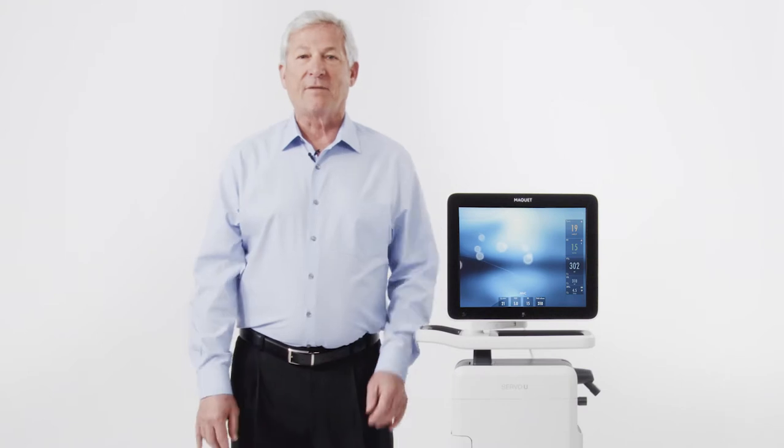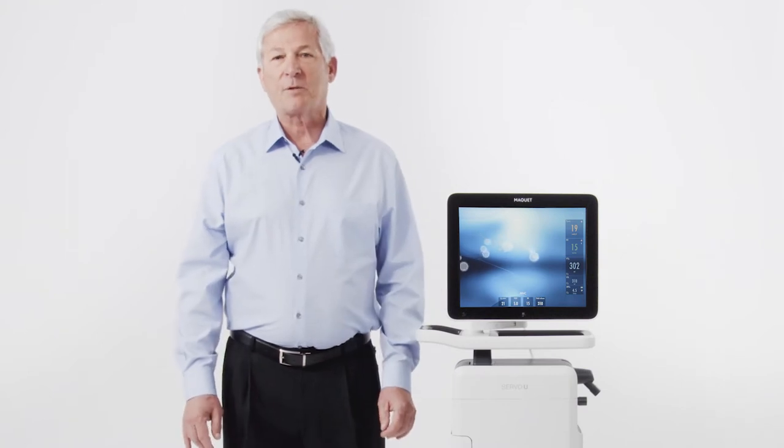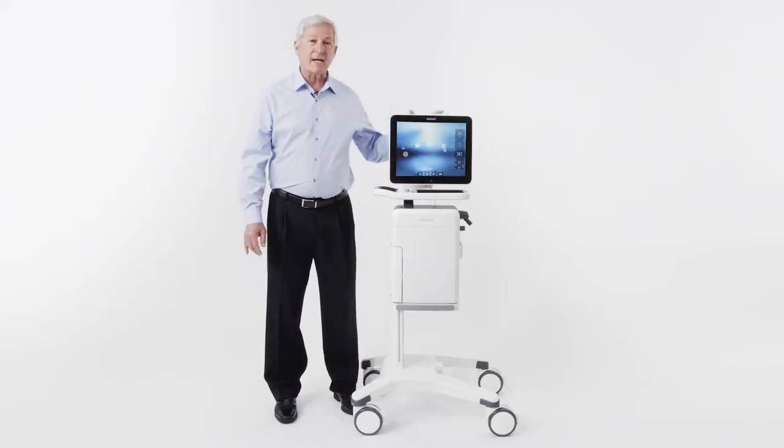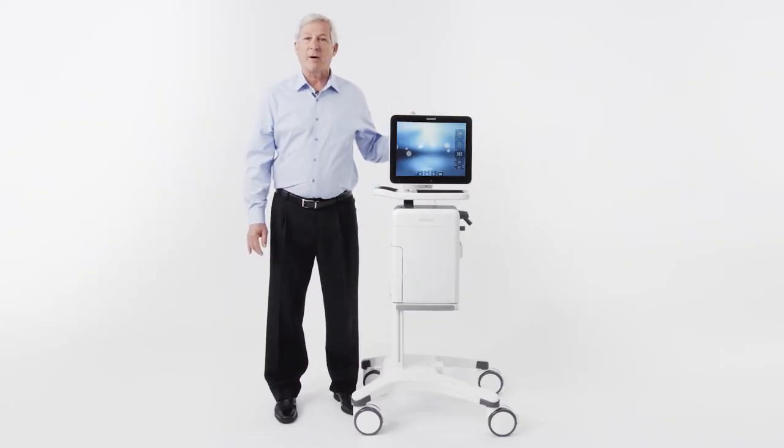Hi, my name is Dave. I'm a respiratory therapist who works for Getinge, and today we're here to talk about NAVA, Neurally Adjusted Ventilatory Assist.